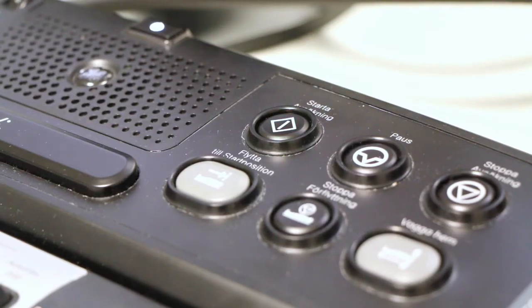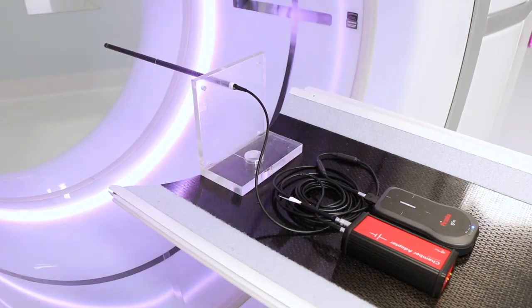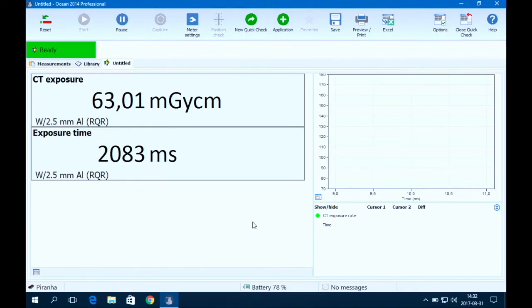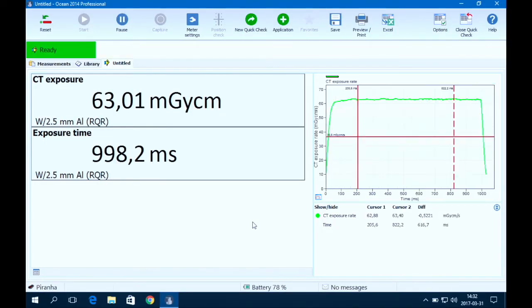Make an exposure. Make sure that the patient table is not moving during the measurements. As you can see, you get all your values directly and you can also study the waveform.